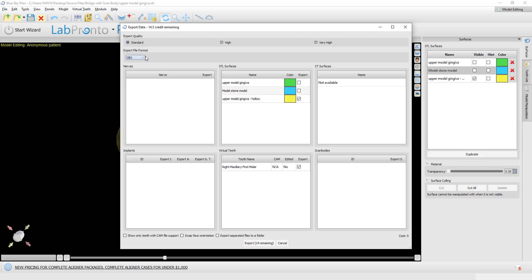We added in our recent versions the ability to export to OBJ or STL. For all intents and purposes, 3D printers accept both of them and can print both. We added OBJ because OBJ actually includes more information in the file than the STL file. It's kind of like a higher version of the STL file, includes more data. But you could select either one. Printers can receive OBJ and print with it as well.